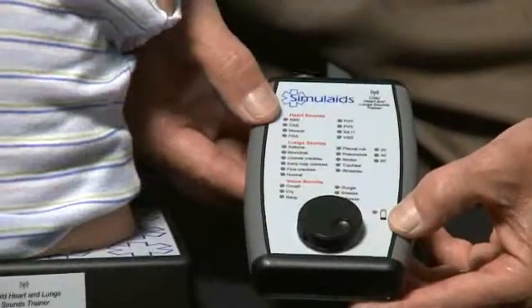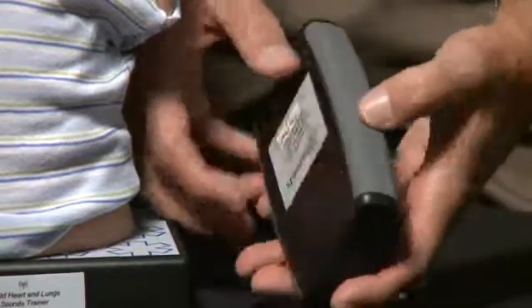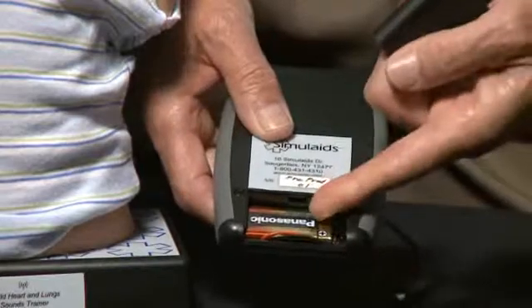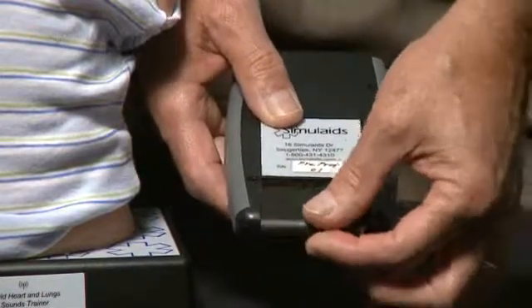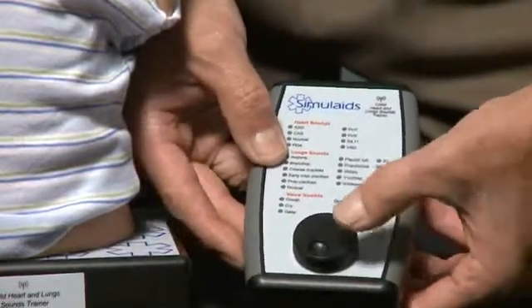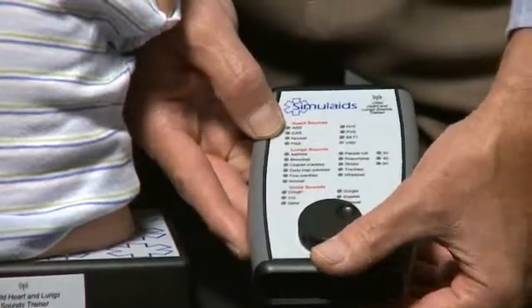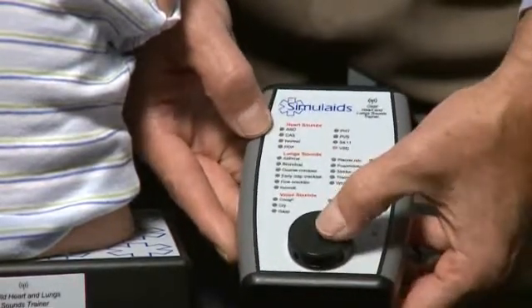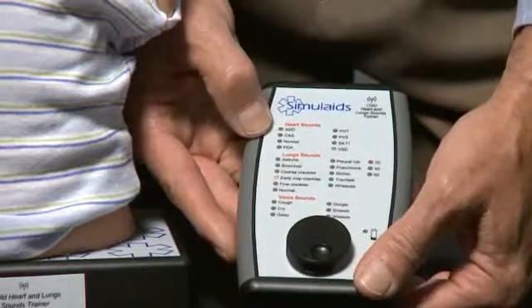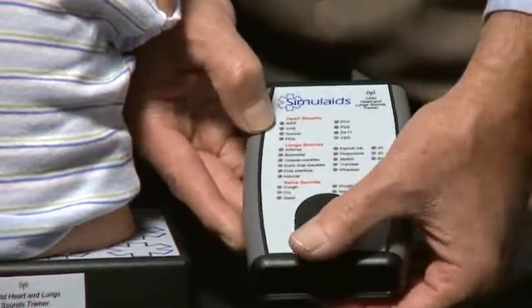To control the unit we use this remote. It's a simple device. Simply slide the cover down, replace the 9-volt battery, and put the cover back in. Tap the knob and it comes on. Dial the knob to pick, in this case, a heart sound, or go to lung sounds and add voice sounds if you like.